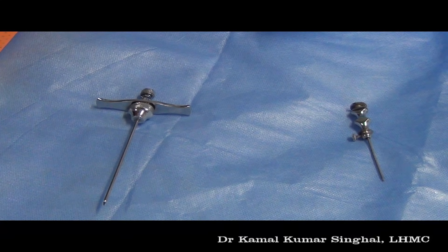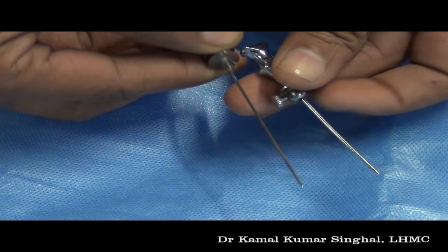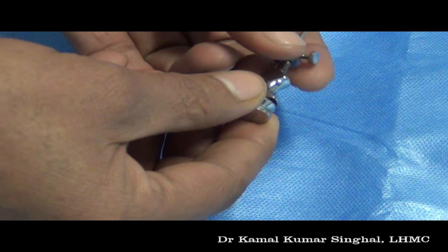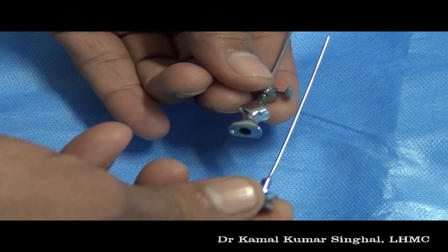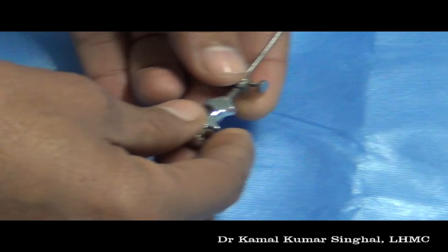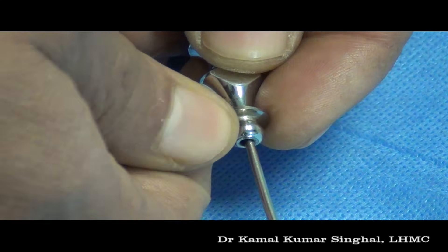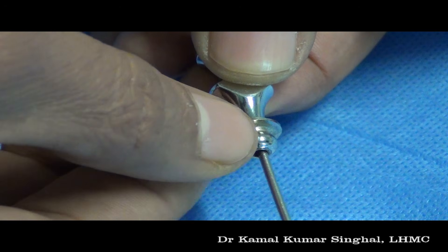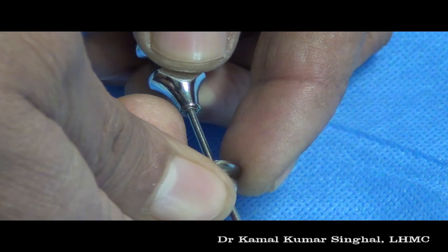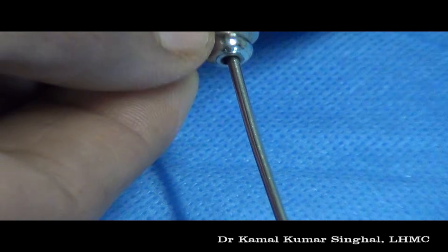This is a bone marrow aspiration needle. A bone marrow aspiration needle also has a well-fitting stylet. It also has a locking mechanism wherein there is a projection which fits into a groove. Once it is locked, it is ready for use. In this particular bone marrow aspiration needle, you can see the guard. You can fix the guard at a particular point on the needle and fix it by tightening the screw. This prevents the needle from entering any further than we want.